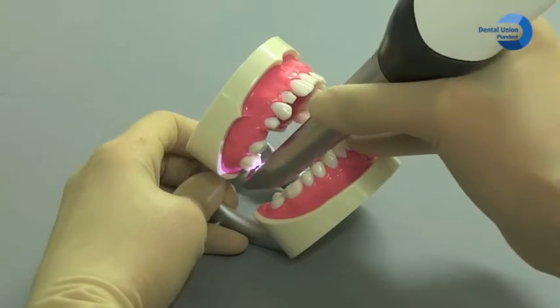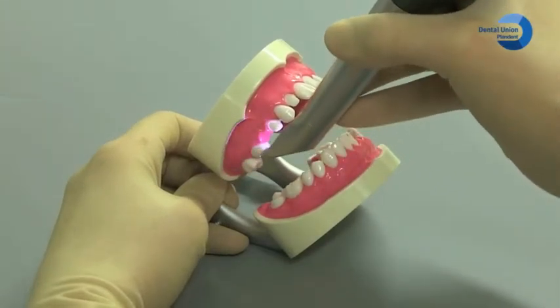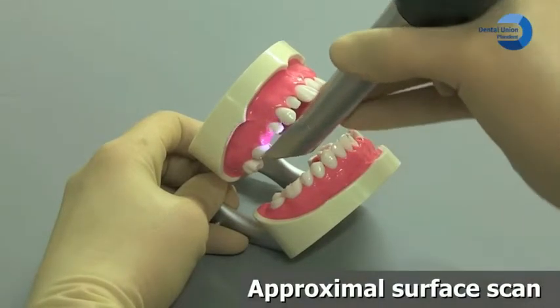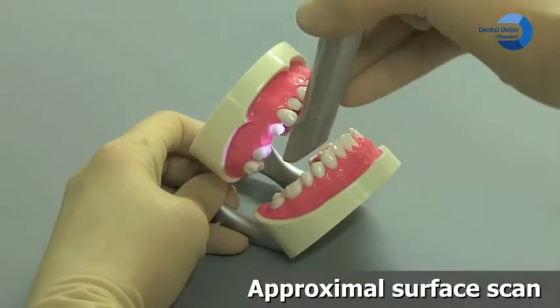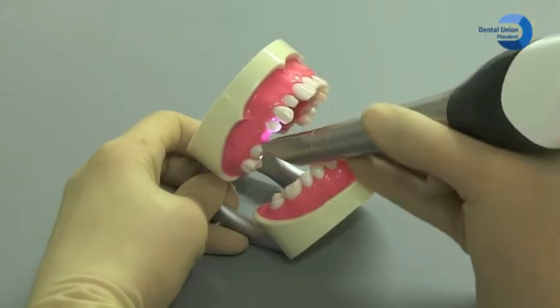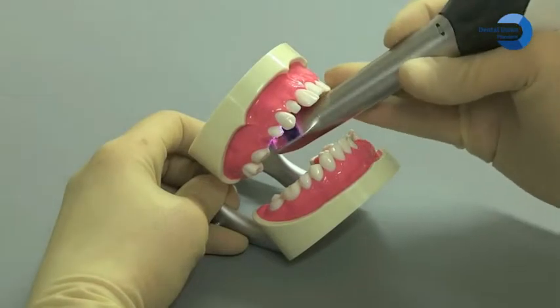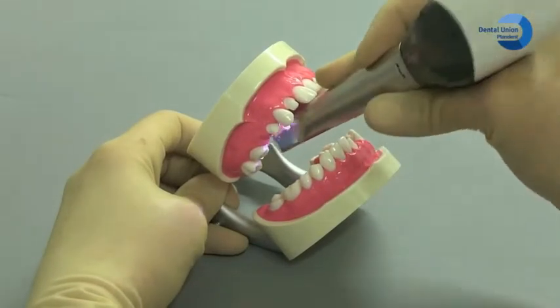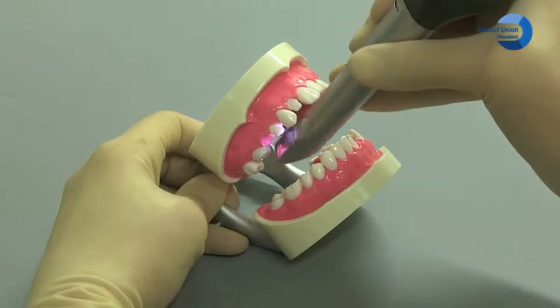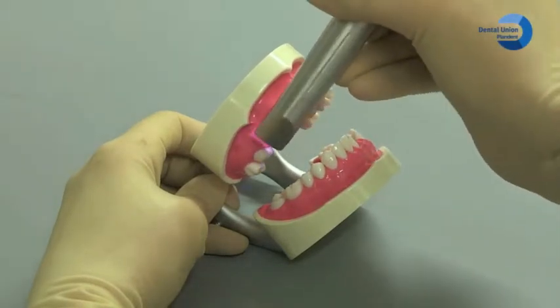Here you see the simulation of scanning a prepared tooth. Acquire the proximal surfaces in the distal and mesial direction by using a wave motion in the occlusal, palatinal, and buccal direction over the prepared tooth. Make sure that you acquire data from both sides of the preparation margin.